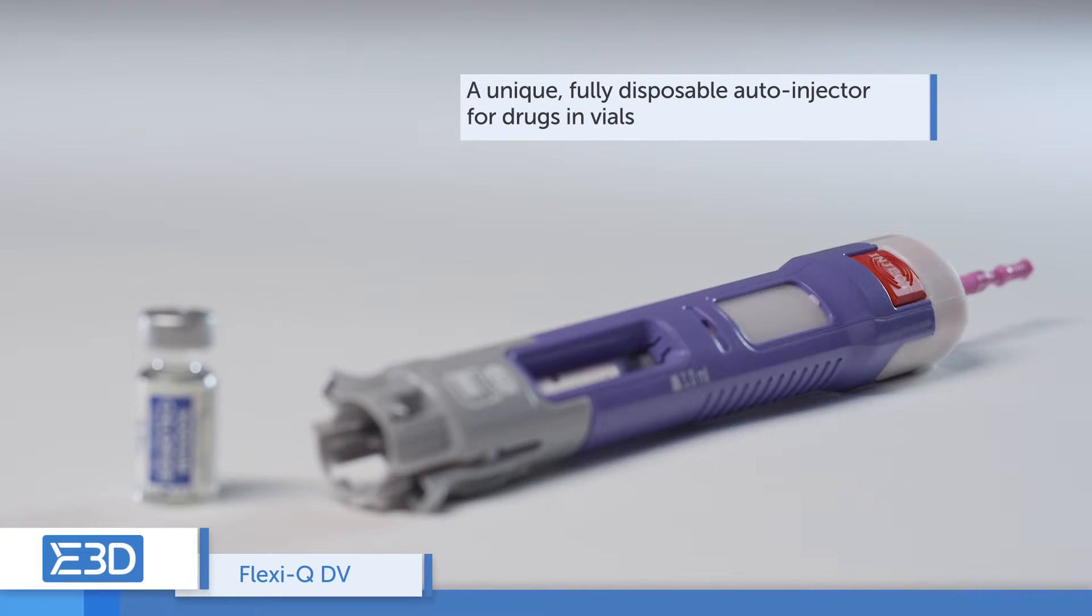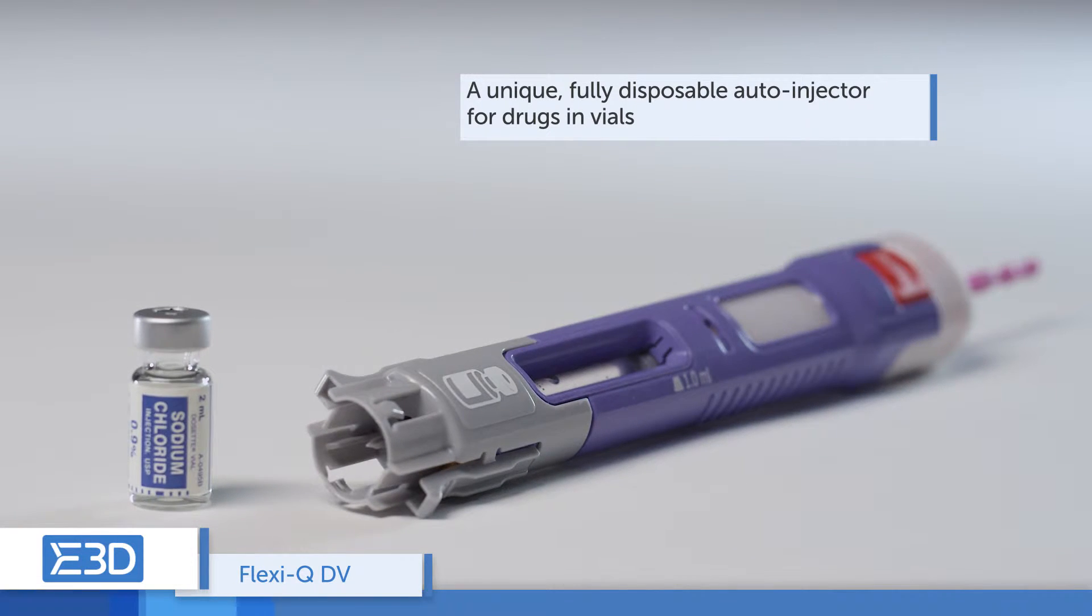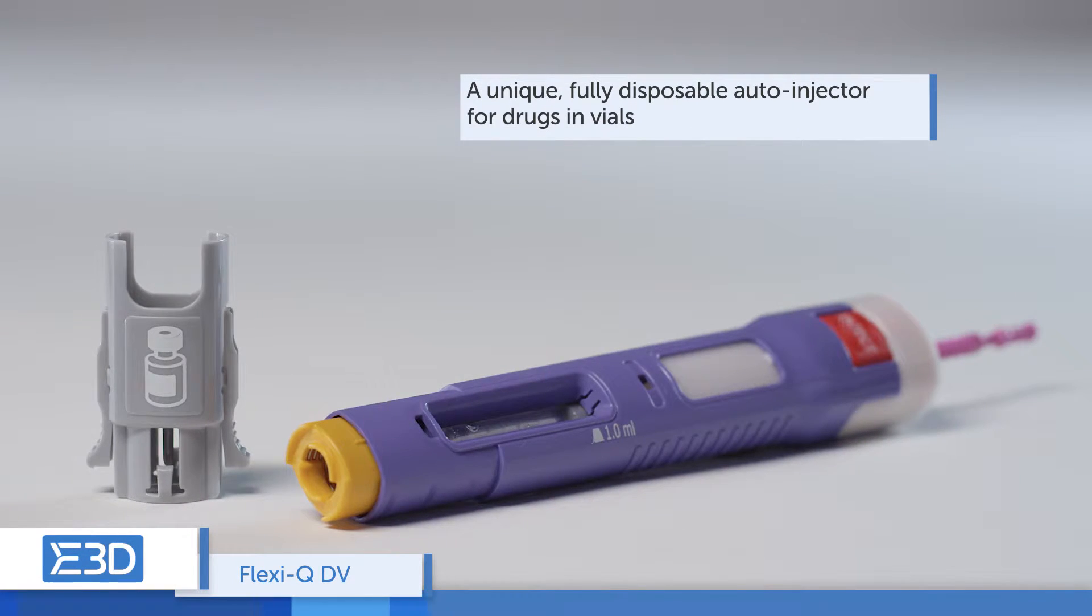The FlexiQ DV is a unique fully disposable auto-injector device and the only commercially available solution for the self-administration of drugs in vials.